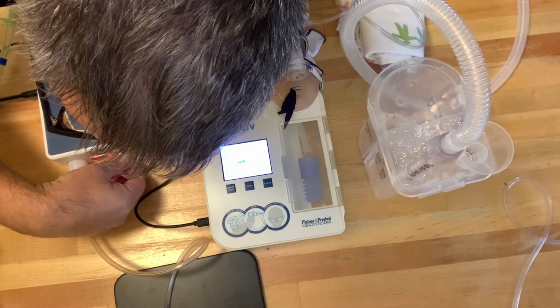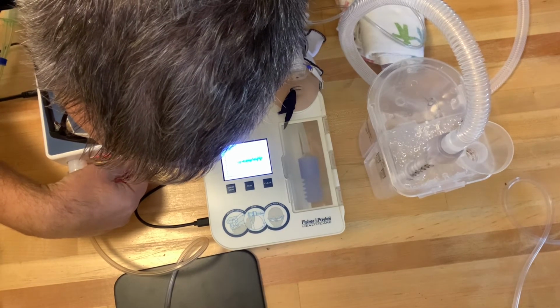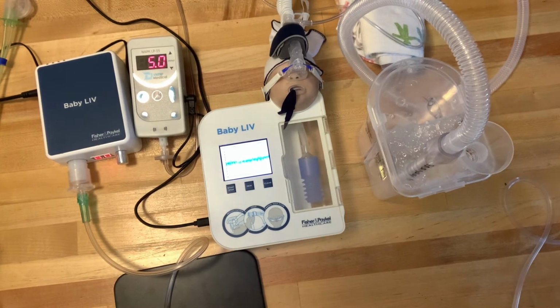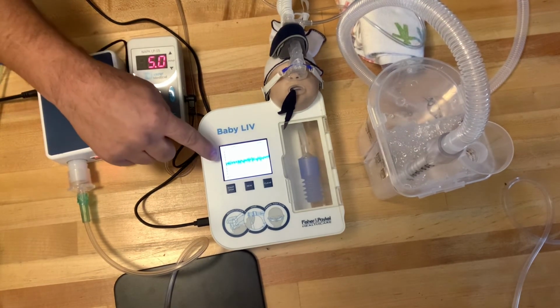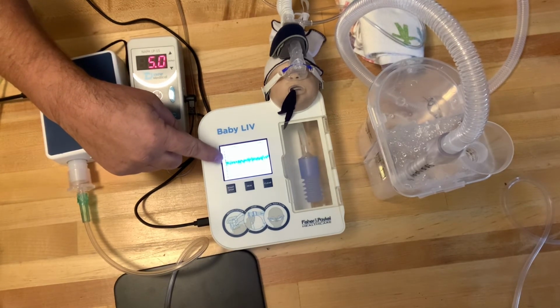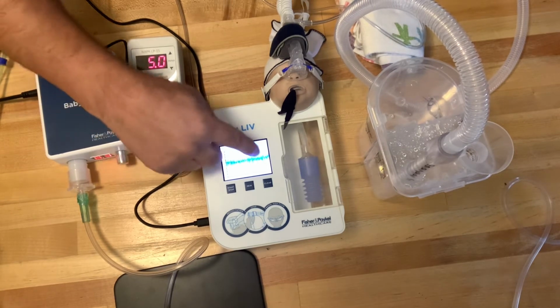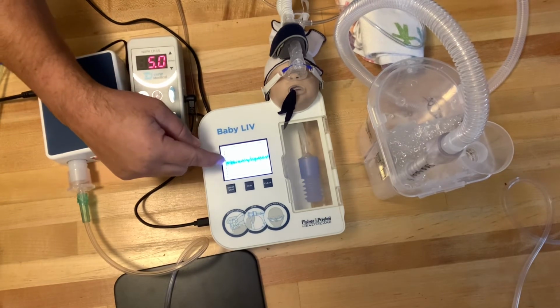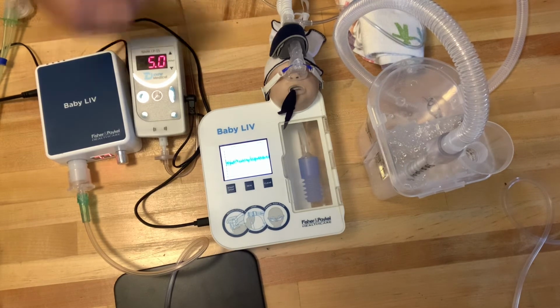And already we have a seal, and we have about 8 liters of flow, 7 to 8 liters of flow, and success. I have 5 centimeters of water pressure on my bubbler. As you can see on the simulator, there are these lines going up and down. Basically, the mean of the CPAP that I'm giving to the baby is 5 centimeters of water pressure, but as we know with bubble CPAP, there's a vibratory effect that happens because of the bubbles.